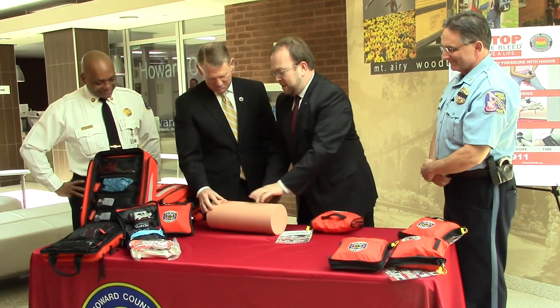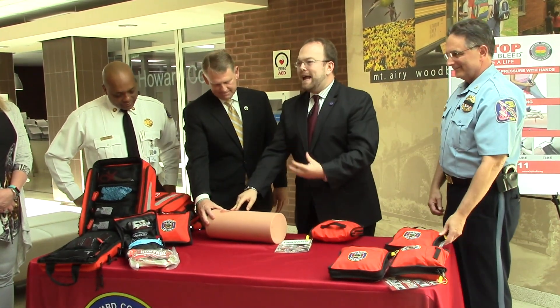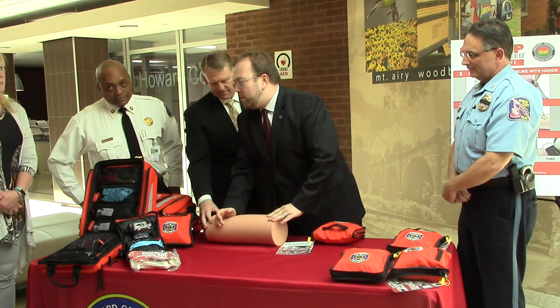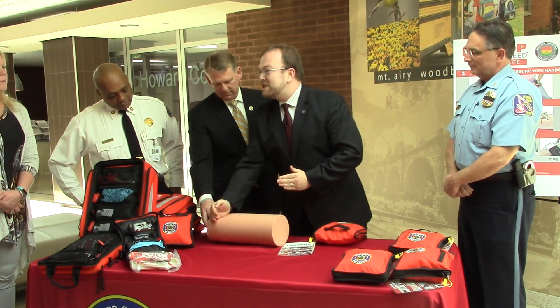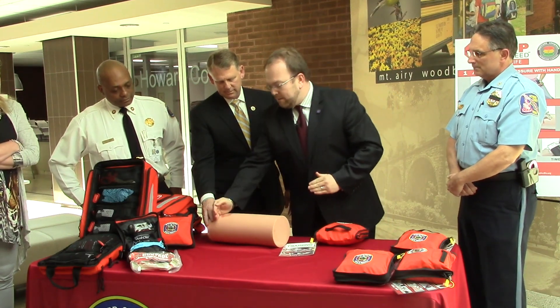There's a hole, so we're going to find that hole. We know it's bleeding severely. 9-1-1 has been activated, help is on the way. What can we do in the meantime? We're going to hold pressure — we're going to hold pressure between that hole and the heart. If the heart is up here, we're going to hold pressure just north of it, just closer, to try to shut off that bleeding vessel.